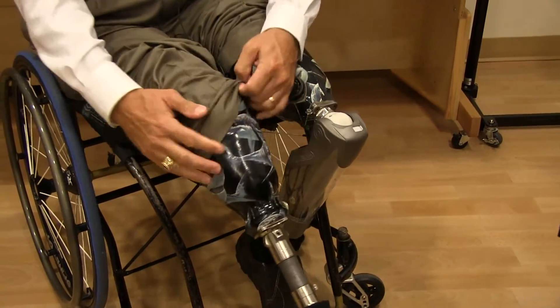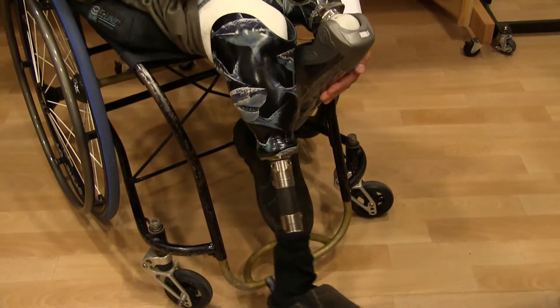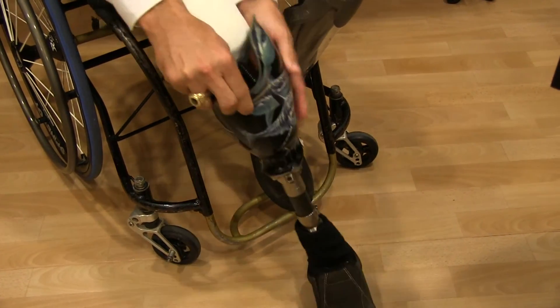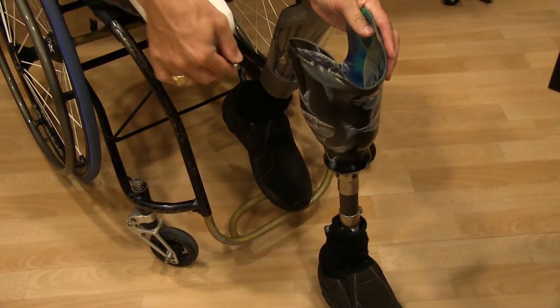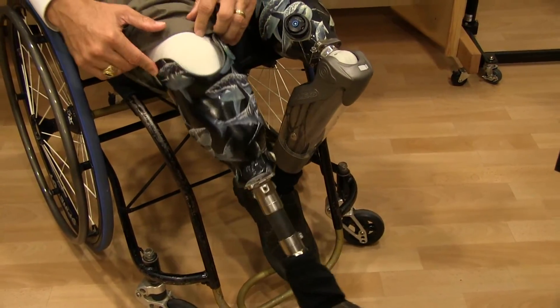This one here is the right side. You can see my super designs with sharks — I love sharks. And this one is a below-the-knee that's held on with a sleeve with a screw rivet that holds on to the leg there.